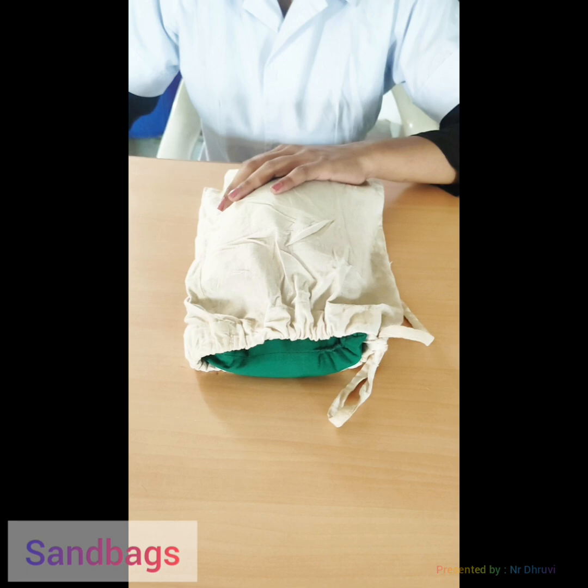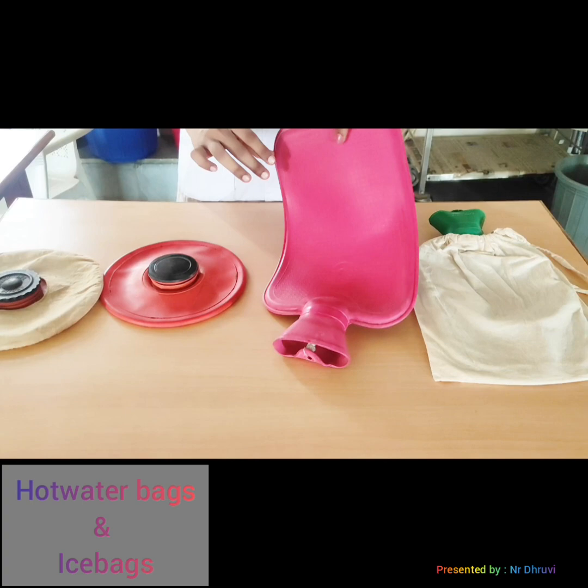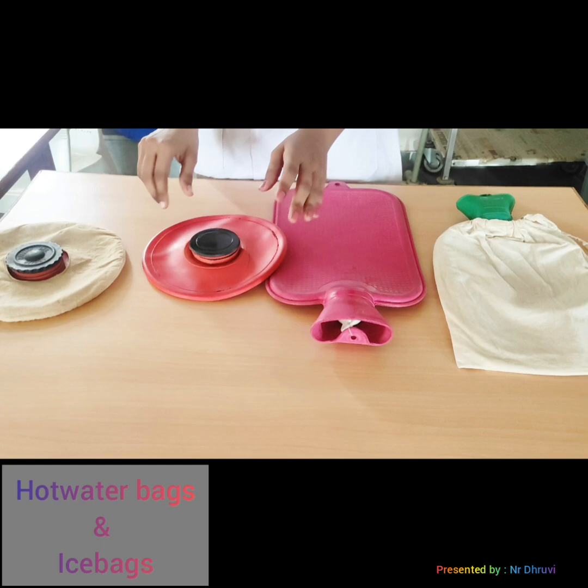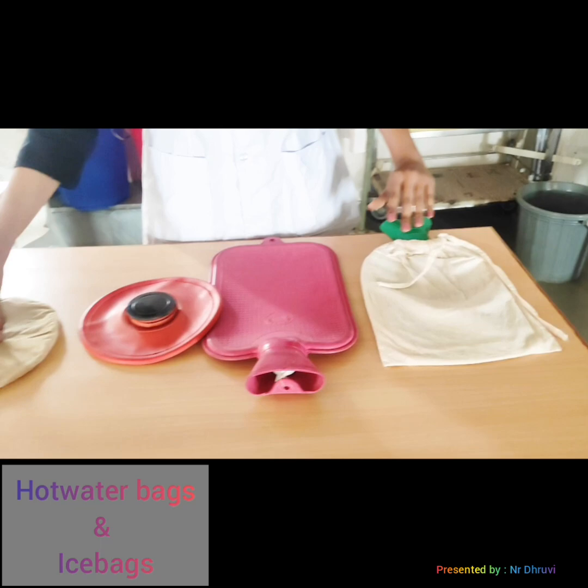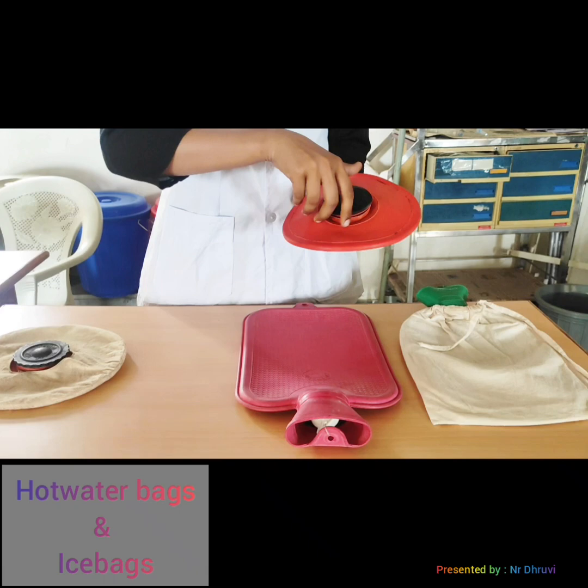The next devices are the hot water bag and ice bag. The hot water bag is used for hot application and the ice bag is used for cold application. These bags are always used with a cover. This is a hot water bag with cover and this is an ice bag with cover. To use the ice bag, you collect ice and fill it in.